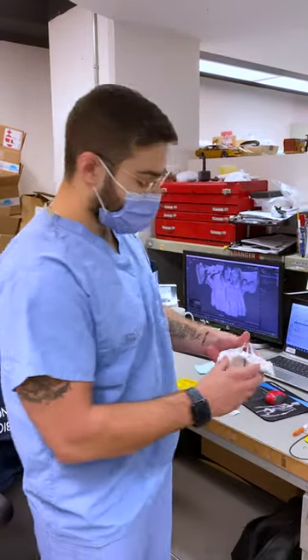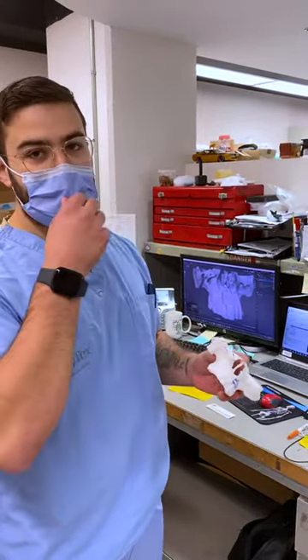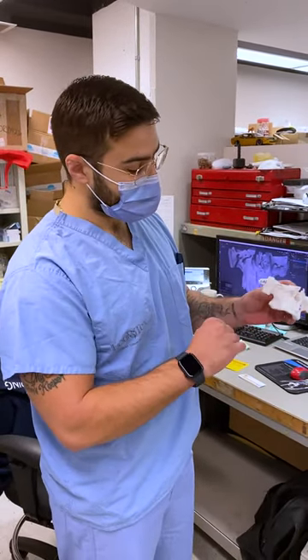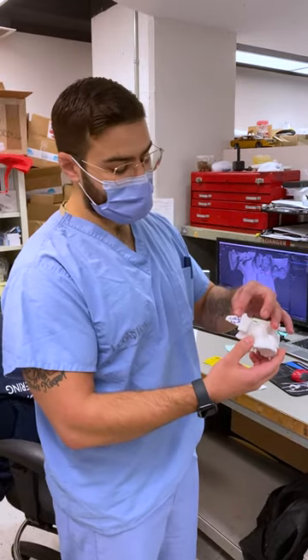This is another model we're working with as well. As I mentioned, the surgical guide being printed on the Formlabs — this is where the guide will rest. It's located on the maxilla, and you can see it's a perfect fitment along the jawline.